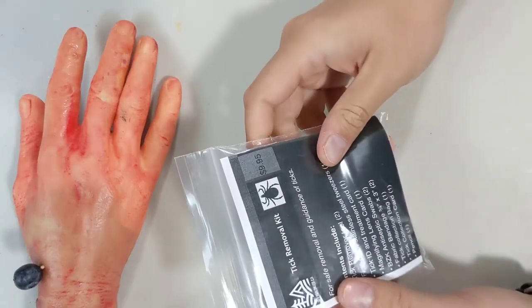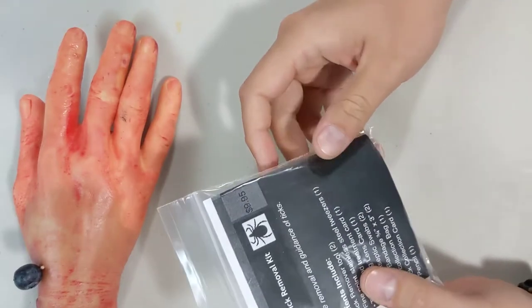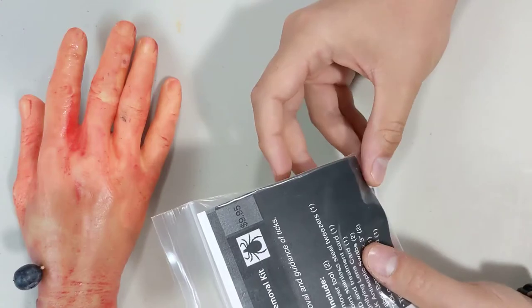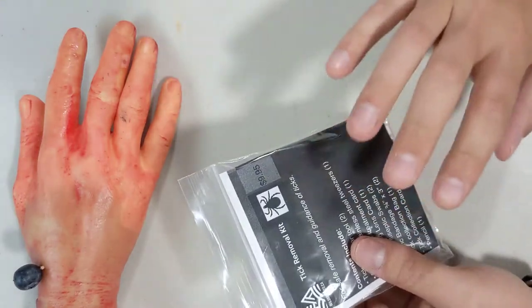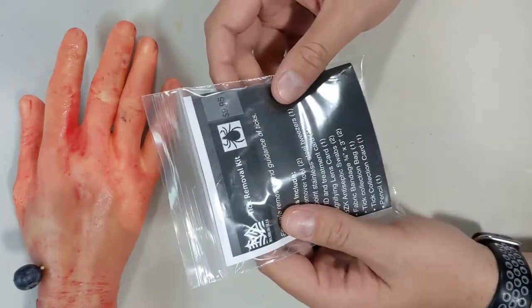This video goes over how to remove ticks safely and what to do with them. In Canada we're seeing a significant rise in the number of ticks, especially ones that can carry diseases such as Lyme disease or Rocky Mountain spotted fever. We've developed this tick removal kit to have all the tools and information you need in one convenient place.